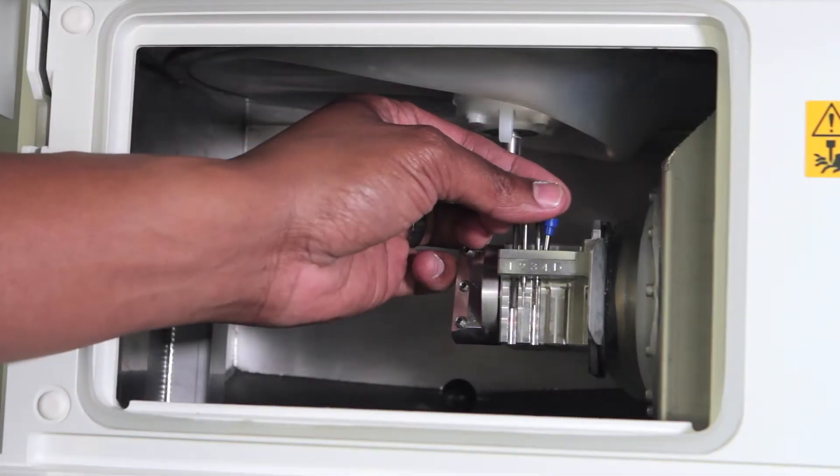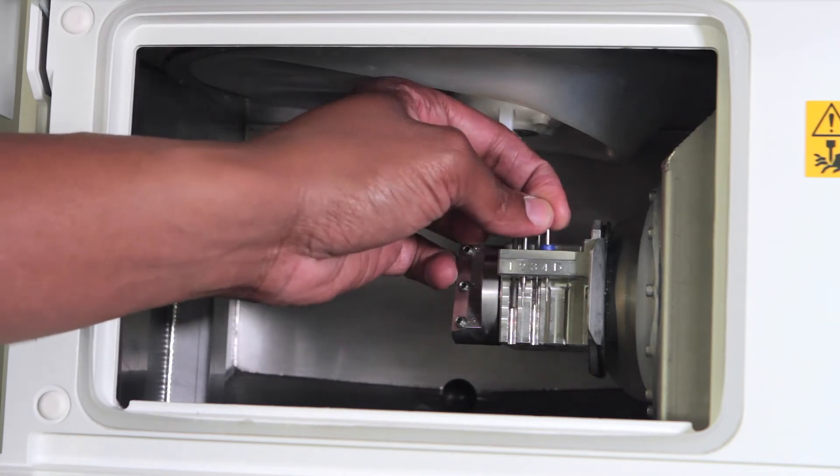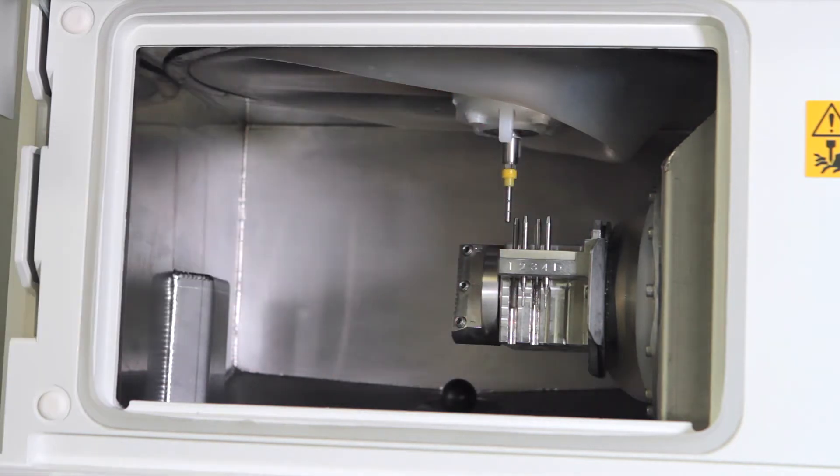Open the front panel and place your tools in the desired slot with the grinding tip face down. The 5th slot should be left open for the dummy pin.